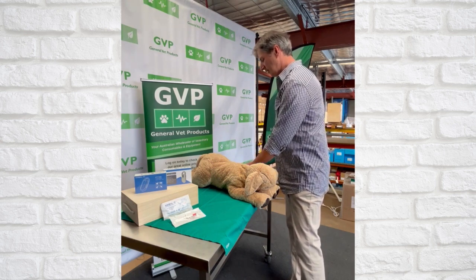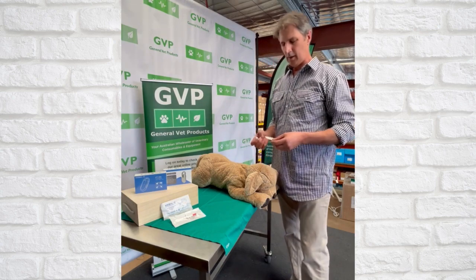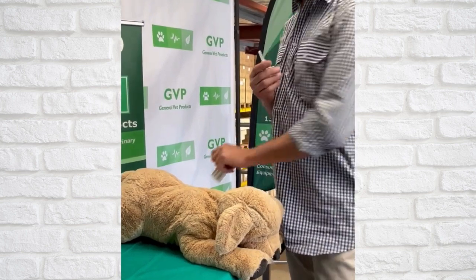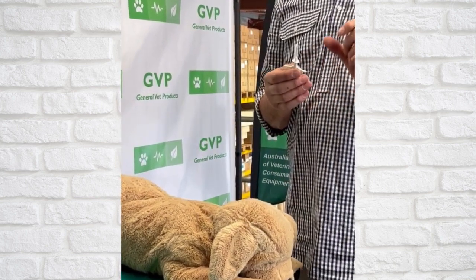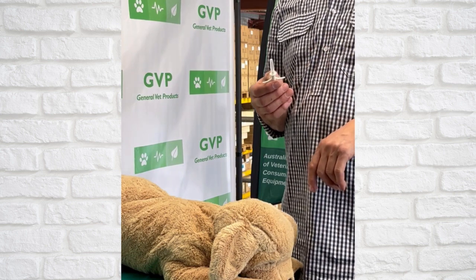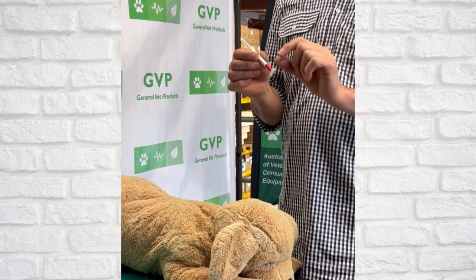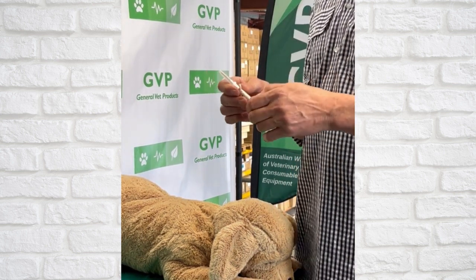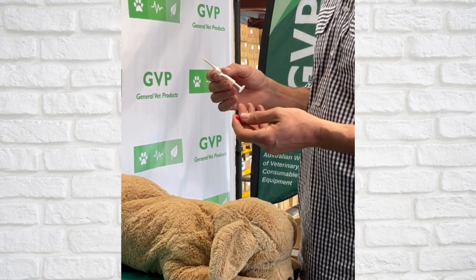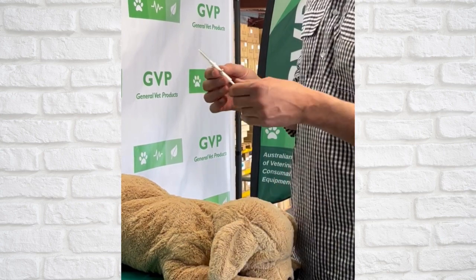Let's open one up here. This is called a mini microchip. It comes with six barcodes. The microchip itself is 1.2mm in diameter and 8mm long, so it's tiny. All our microchip applicators have a little red stopper on them. It's really useful if you've got a litter of pups because you know which microchips you've used and which you haven't. You need to take that off to be able to depress the plunger on the actual microchip.